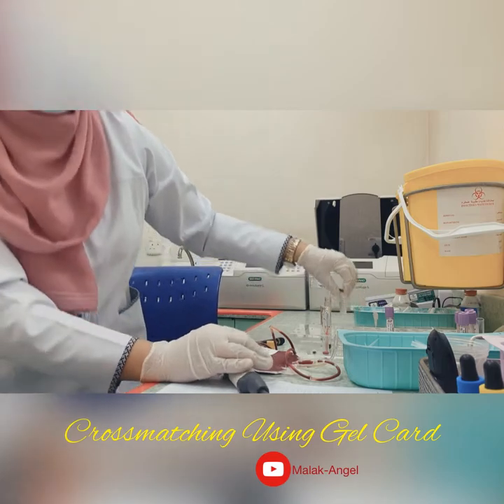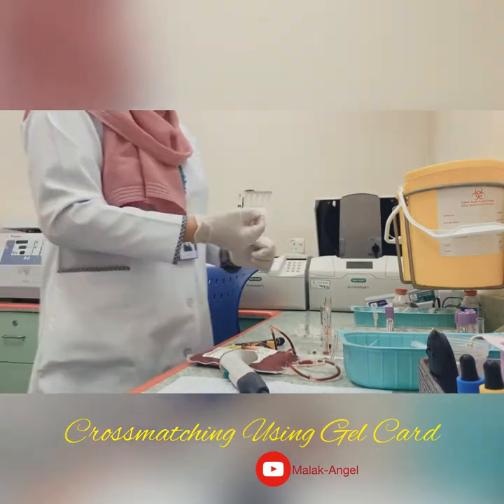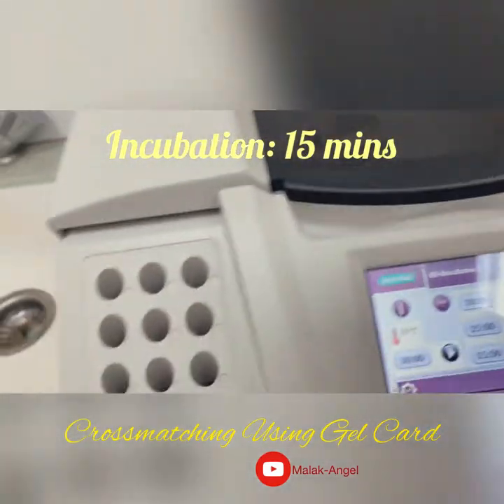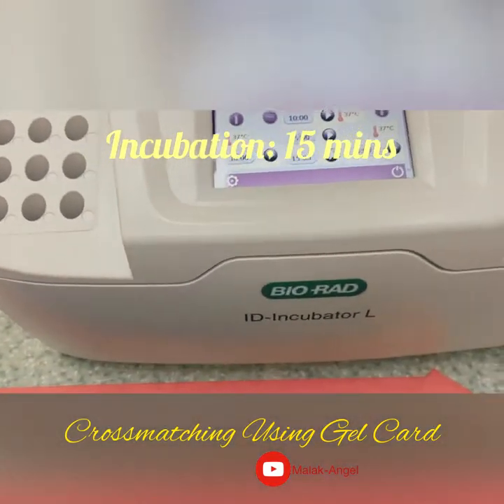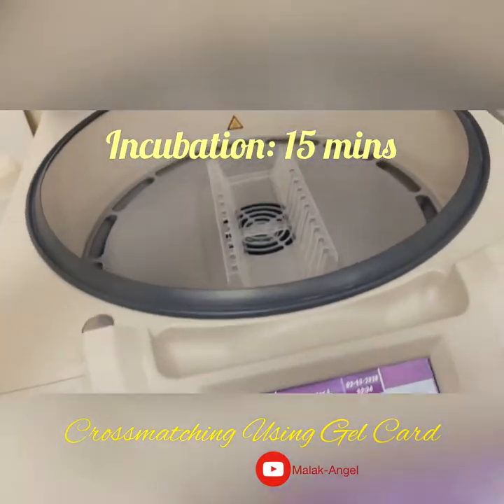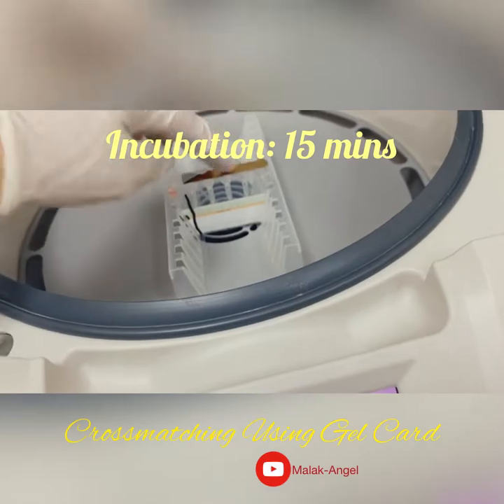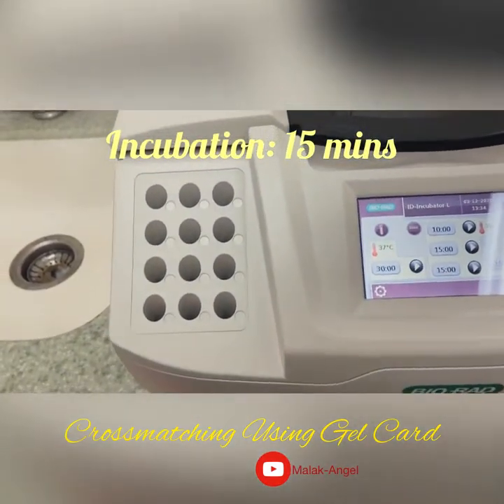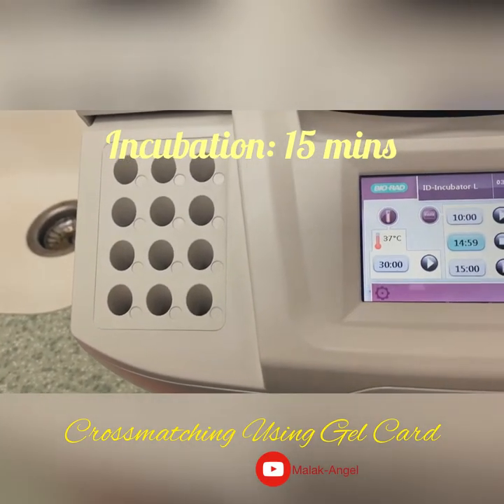After that we will incubate for 15 minutes. This is the incubator — we will incubate for 15 minutes. This is the rocker. Close it and choose 15 minutes.